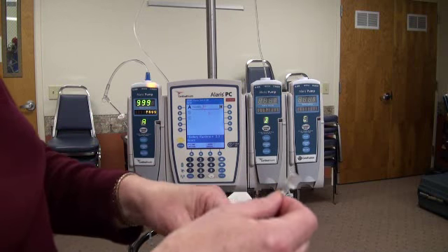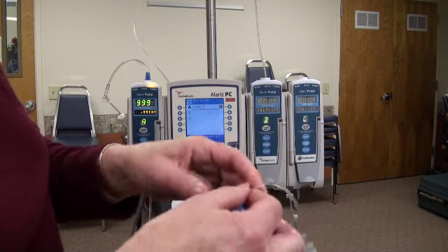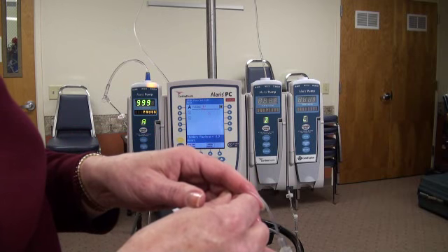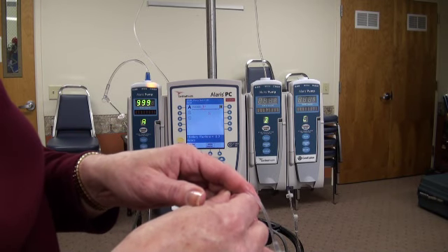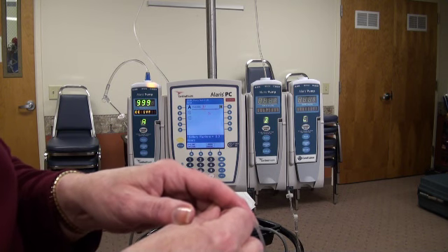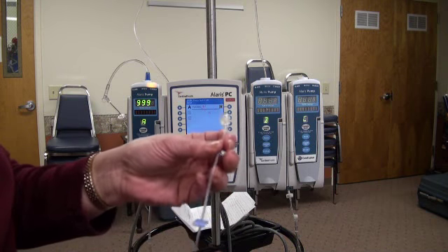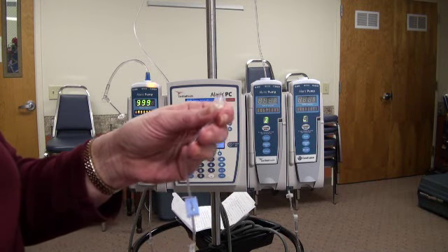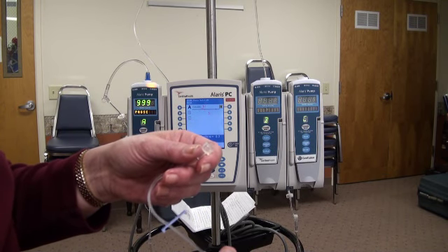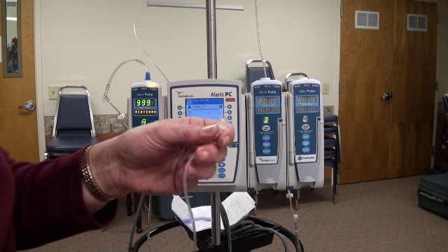I'm going to hit pause for this purpose. It's on standby. It's not running. The yellow light shows you it's on standby. It's paused. It's gone through the memory. It's checking again. And it'll take a couple minutes for it to go through and check and see what's the matter.